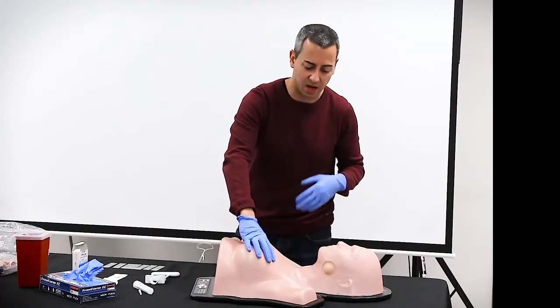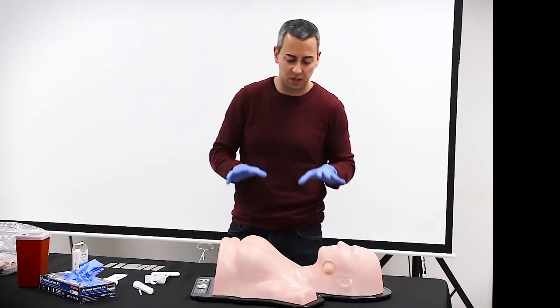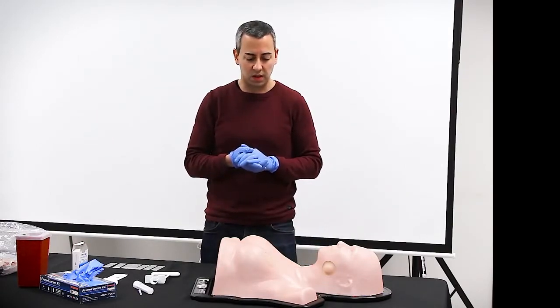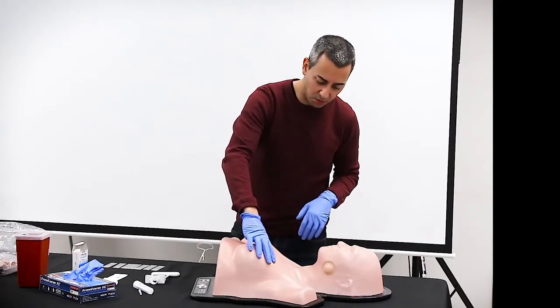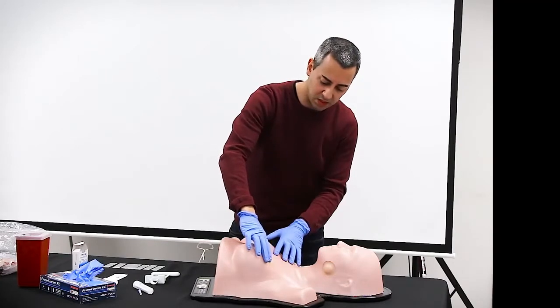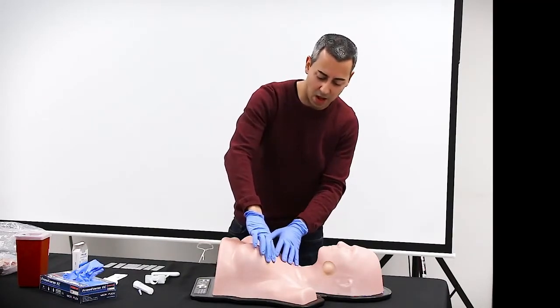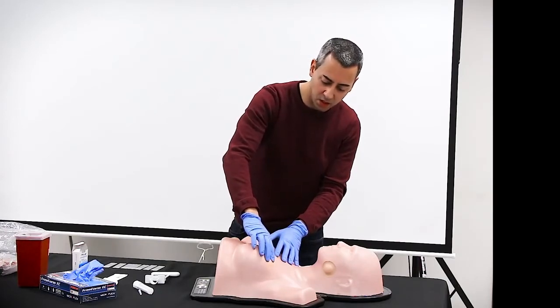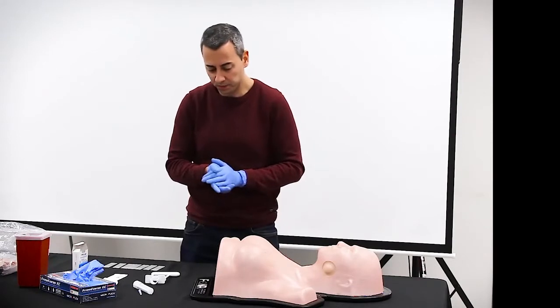We have to create a clinical scenario. So each student faces a different clinical scenario. So for example, this in the breast, this is a woman with a lump in the breast. So you can touch and you can feel that there is a lump. There is something which is not normal in this woman.